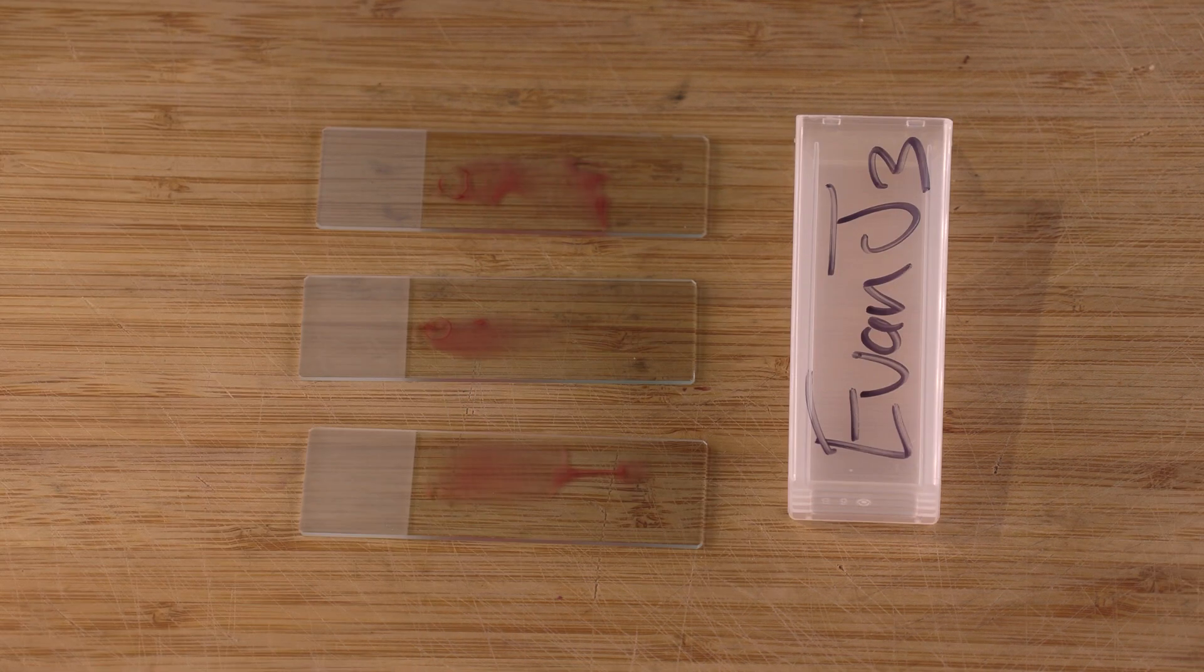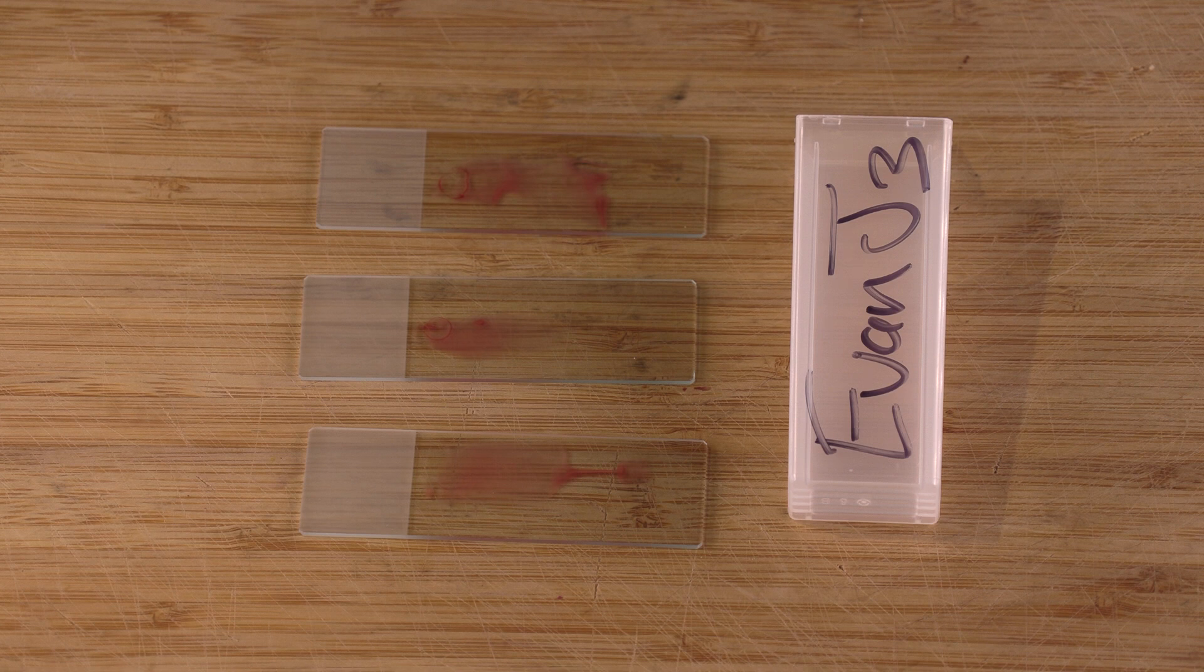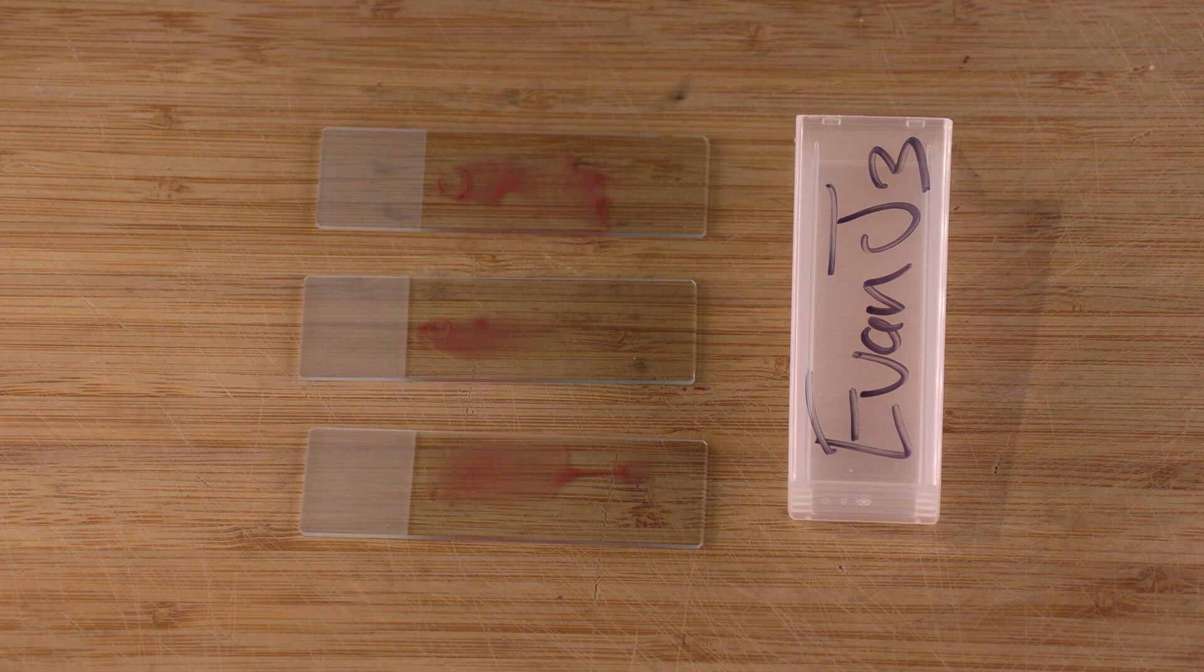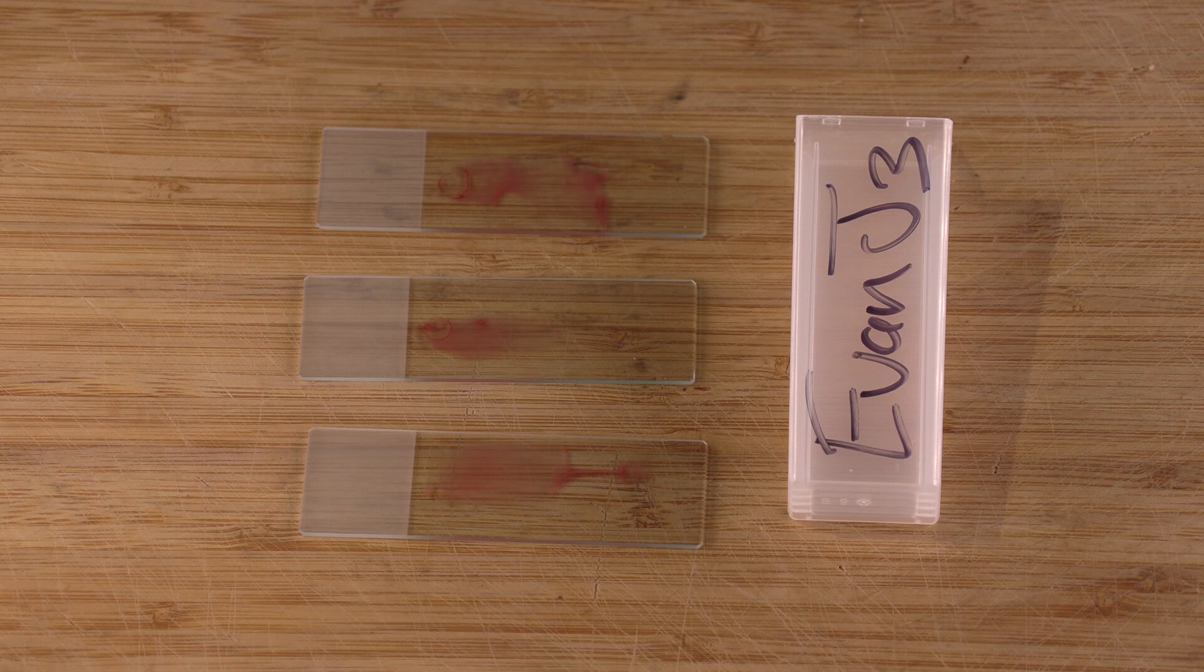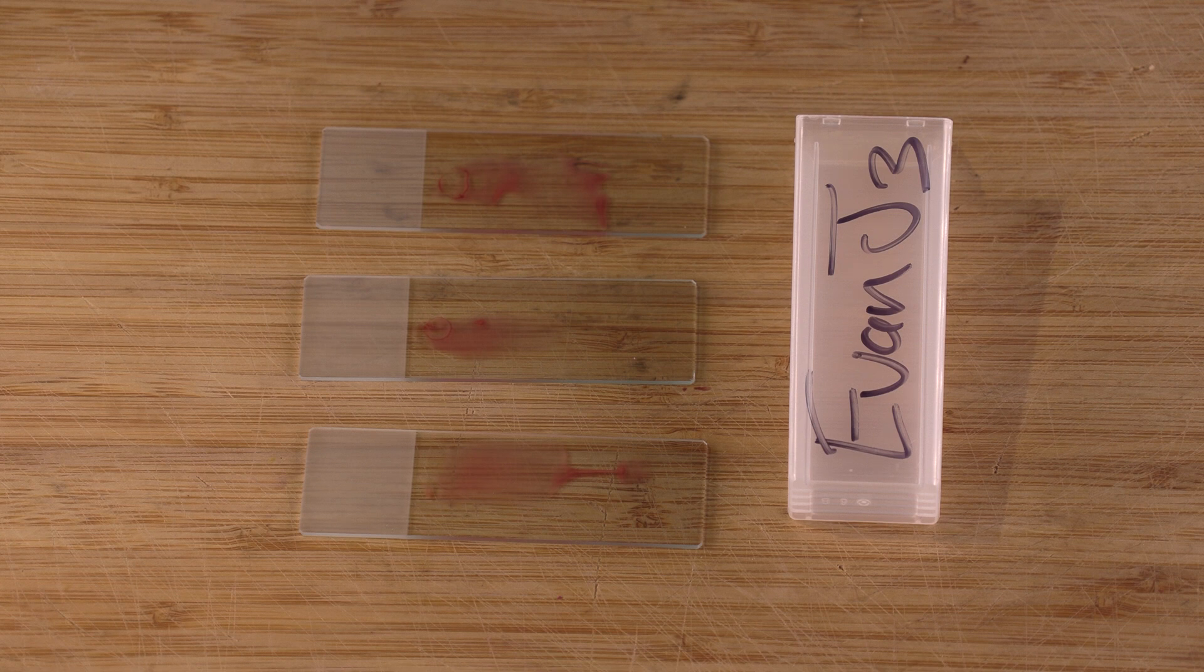Once you've made all three of the slides, slides will need anywhere from 15 to 60 minutes to dry. Exactly how long it takes will depend a bit on how dry your climate is or how humid your climate is. Denver in the winter is extremely dry so they dry quick. A place like Florida in the summer will dry more slowly and might be closer to an hour. Make sure you're drying the slides in a place with low dust, definitely no flies, no animals, no kids, nobody who's going to touch your hard work. You don't want anything or anyone coming near the surface of your thin film that will contaminate it.